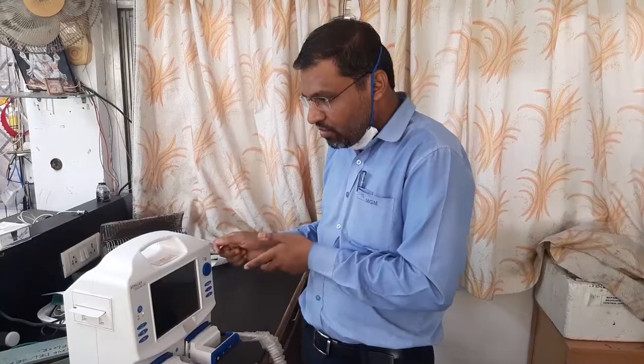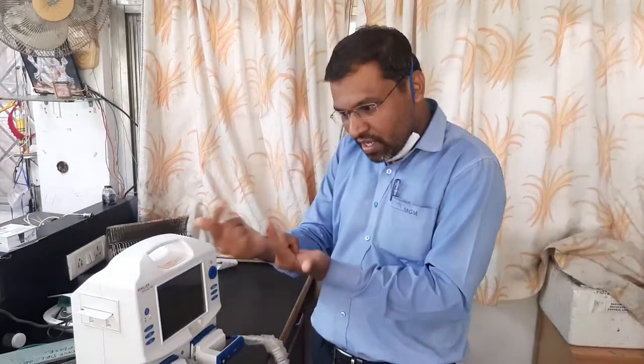If you are not able to deliver shock to the patient, check the mode — either synchronous or manual. In synchronous mode, the machine decides according to patient data, so don't panic. Most importantly, when a doctor is giving a shock to a patient, all surrounding staff must keep in mind that this machine delivers current — if you are simultaneously touching the patient, there are chances you will also get a shock. Whenever applying the defibrillator, do not touch the patient, and if possible remove the oxygen mask from the patient at the time of shock delivery.